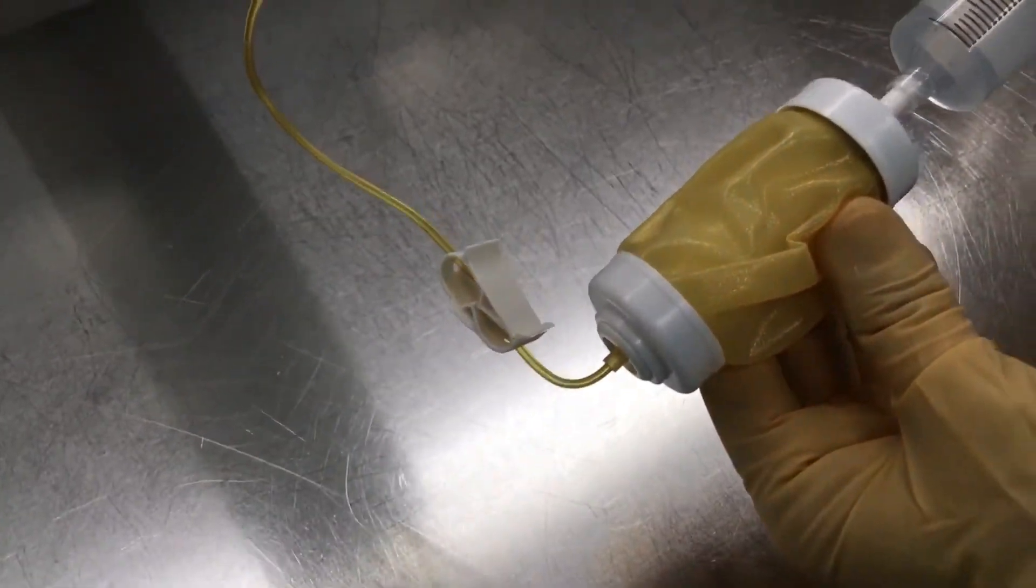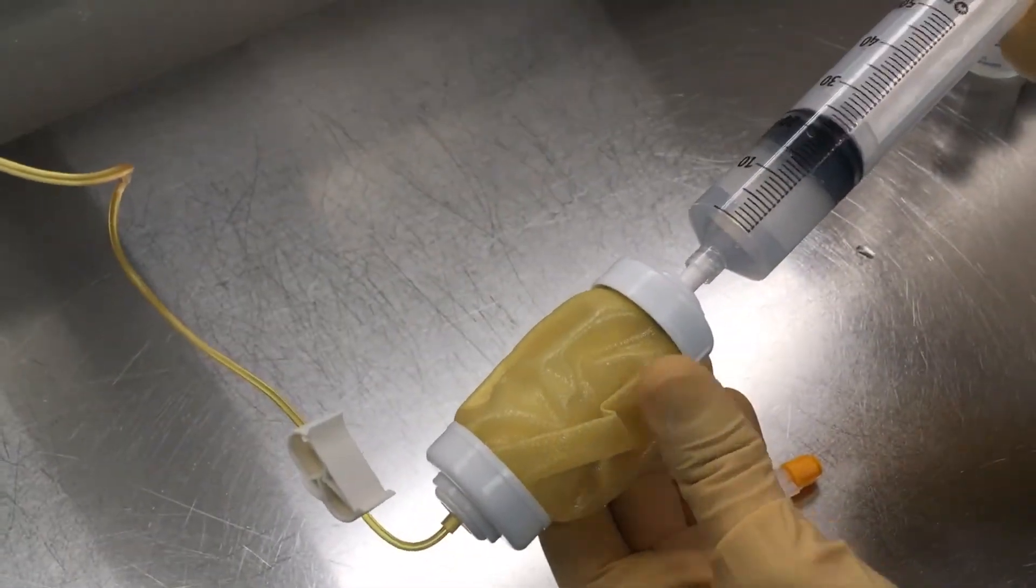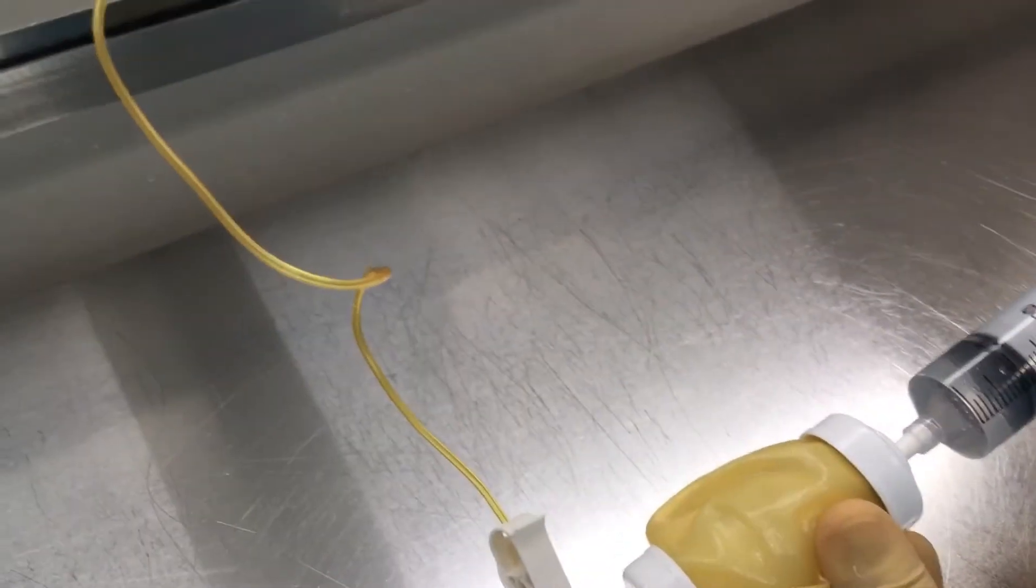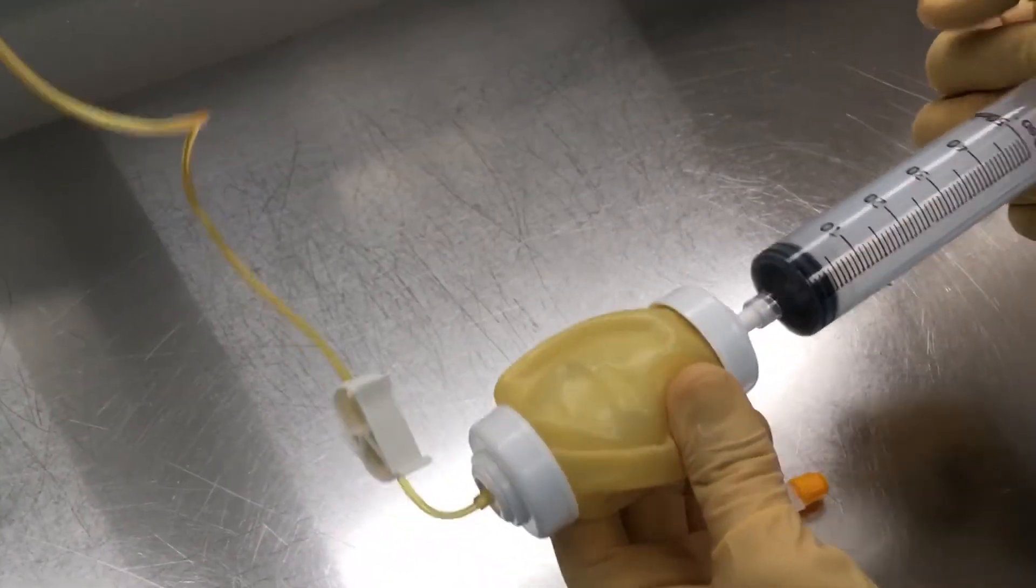This part is opened, clamp is closed, and we put everything into the pump. There you go.